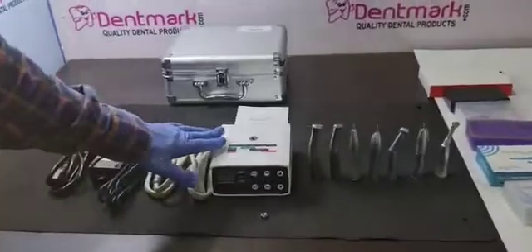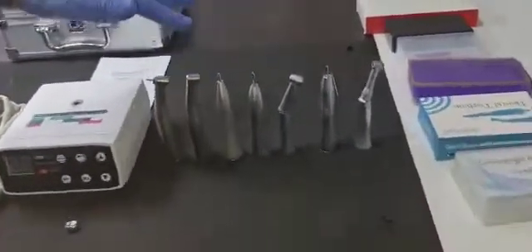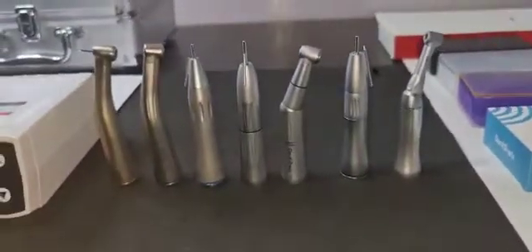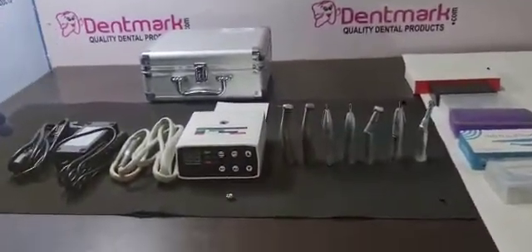First of all, I will show you the functions, how to fix it with the chair of the electric motor, and I will tell you all the functions of different attachments that can be used with the electric motor, which is more confusing nowadays what to attach. So we will clear your doubt.